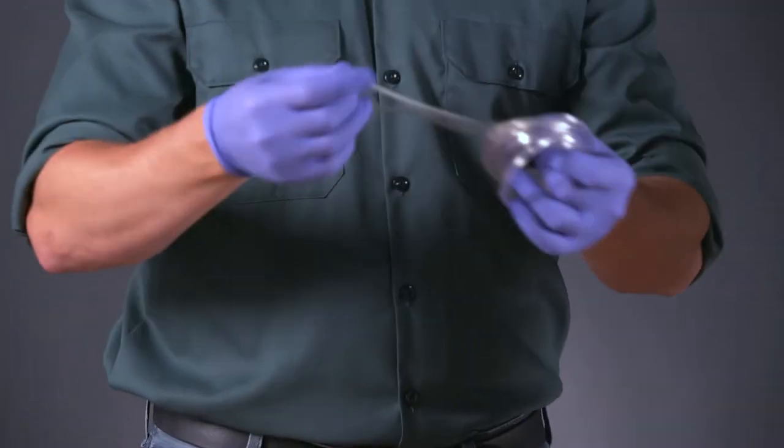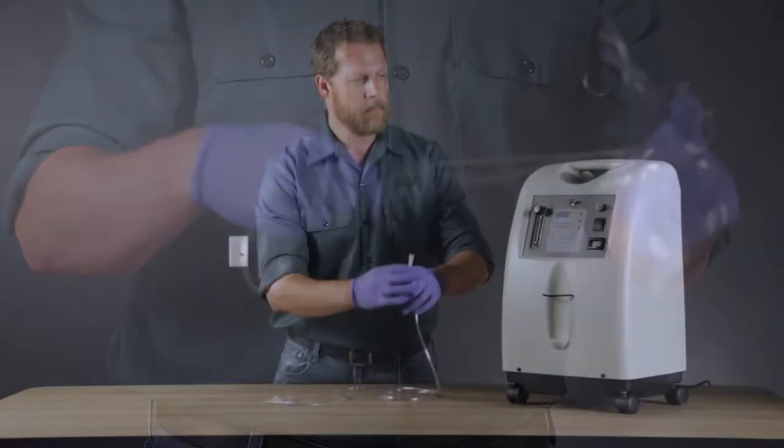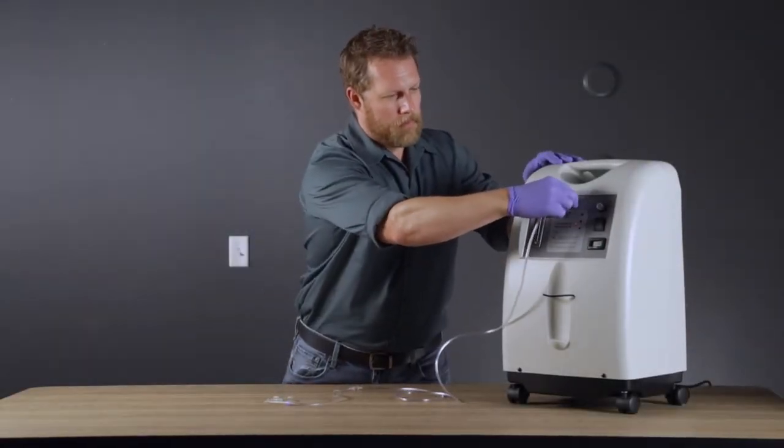After removing the nasal cannula from its plastic packaging, connect the cannula to the Oxygen Outlet on the concentrator.